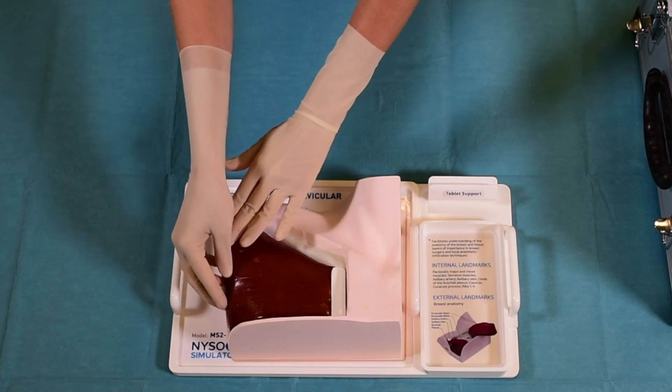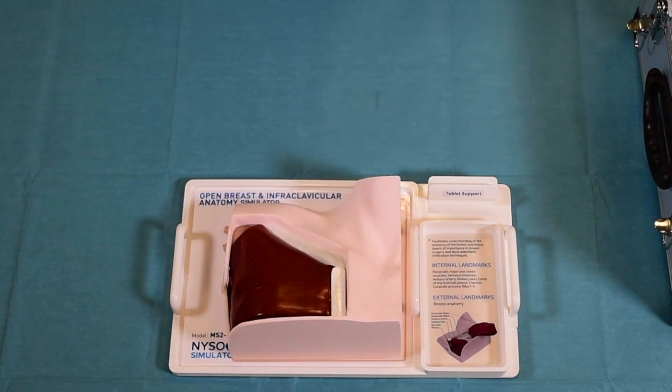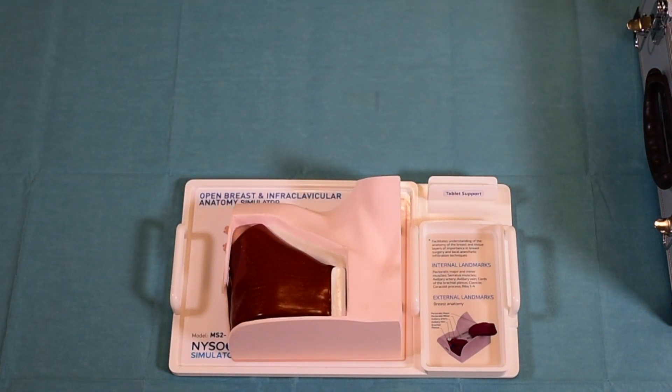The same model can also be used to teach the infraclavicular access to the vasculature.